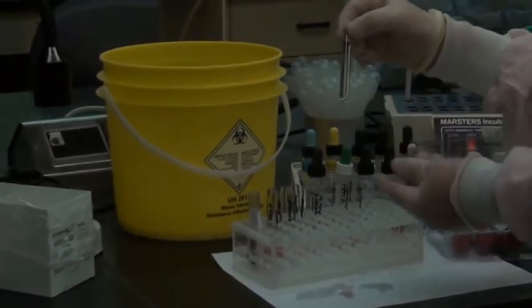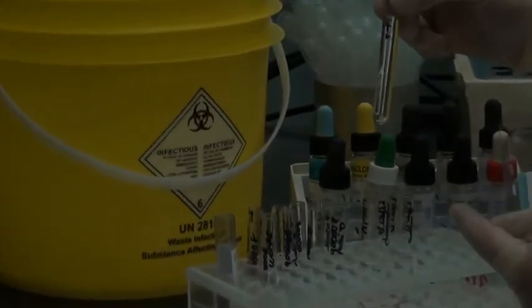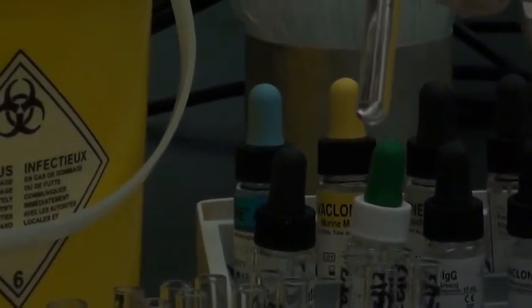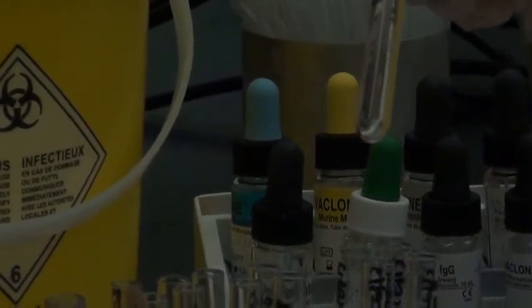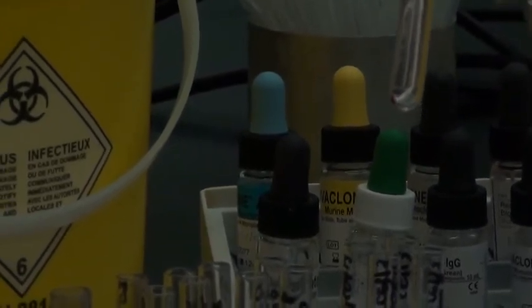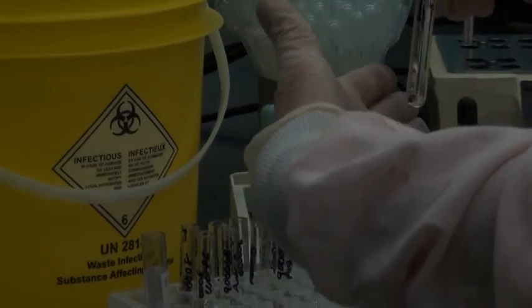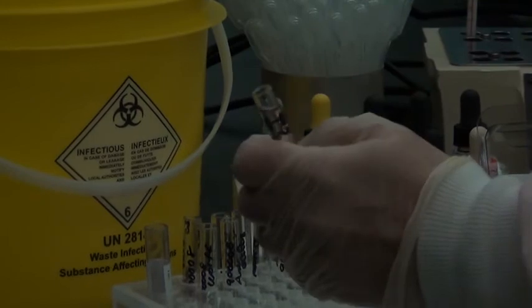When you pull the tube out of the centrifuge, you'll notice that the cells are kind of off to one side of the tube. Let's see if we can see that there. There we go. There they are on one side of the tube as opposed to being right smack on the bottom of the tube. And that's simply because we have an angle head centrifuge, and so the cells stick to one side. We need to put the cells against the palm of our hand. So I'll try to show you here. The cells are on this side of the test tube, and that's going towards the palm of my hand. And this will just help you to not lose cells when you dump them.